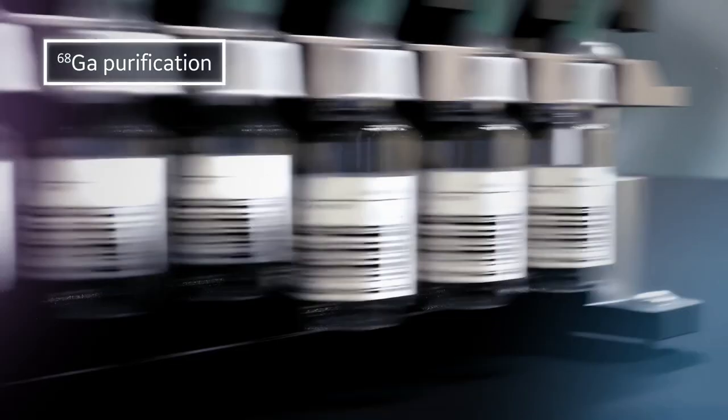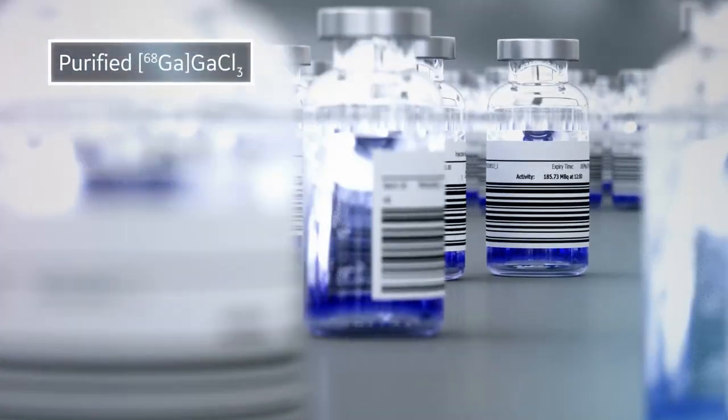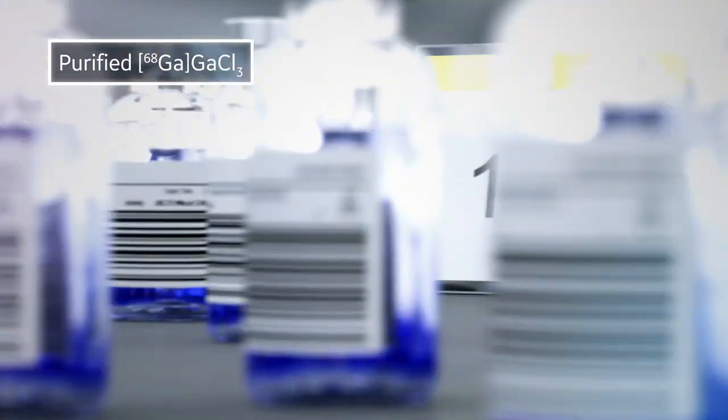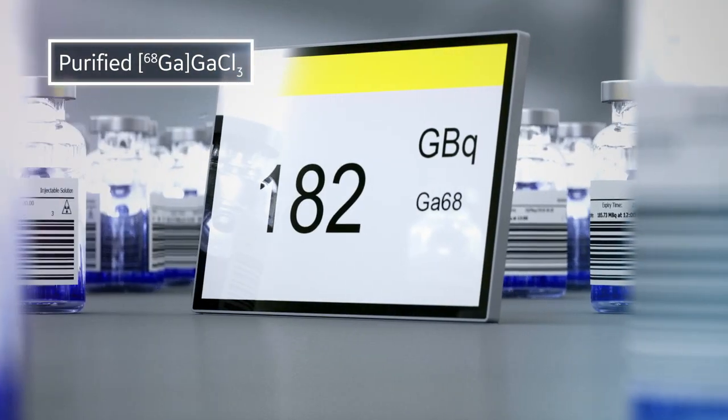After going through purification, large quantities of gallium chloride are ready for the next step, enabling precision medicine for your patients.